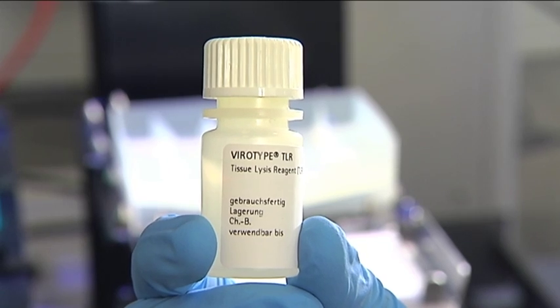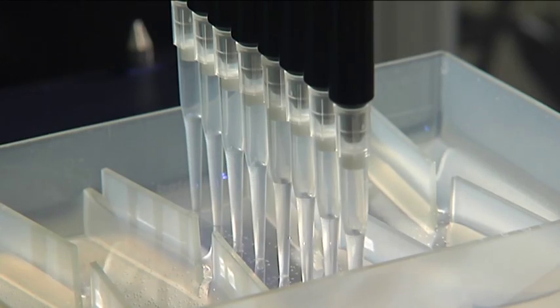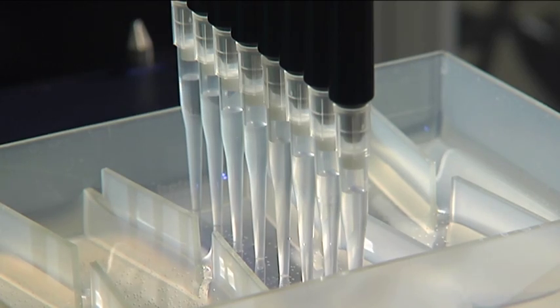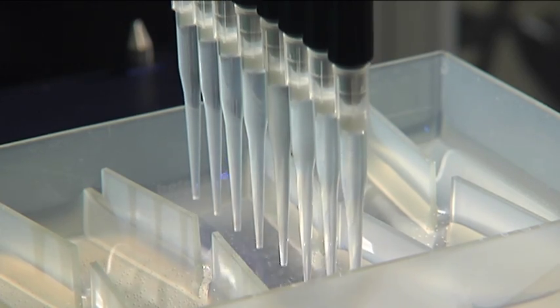In the first step, 200 µL of Viro-type TLR lysis buffer is directly pipetted into each tube containing an ear tissue sample.